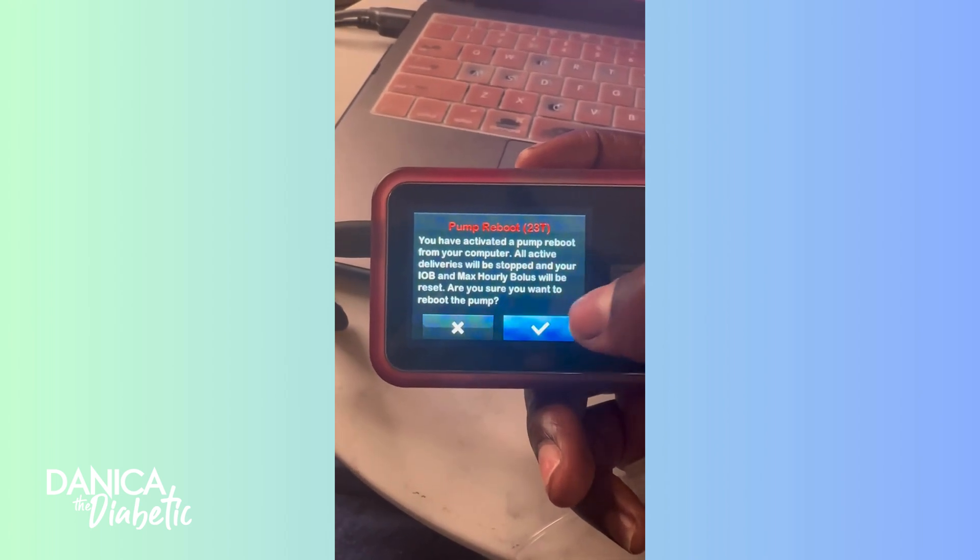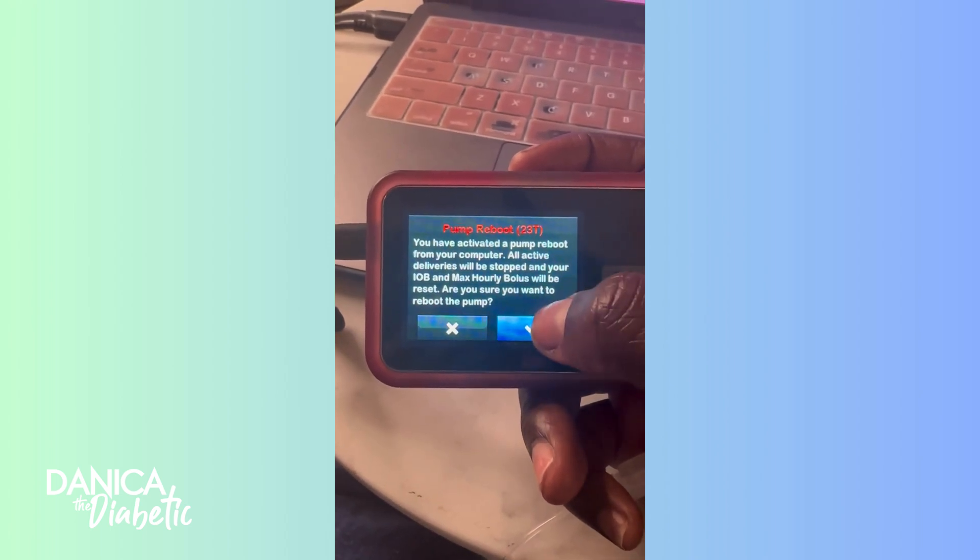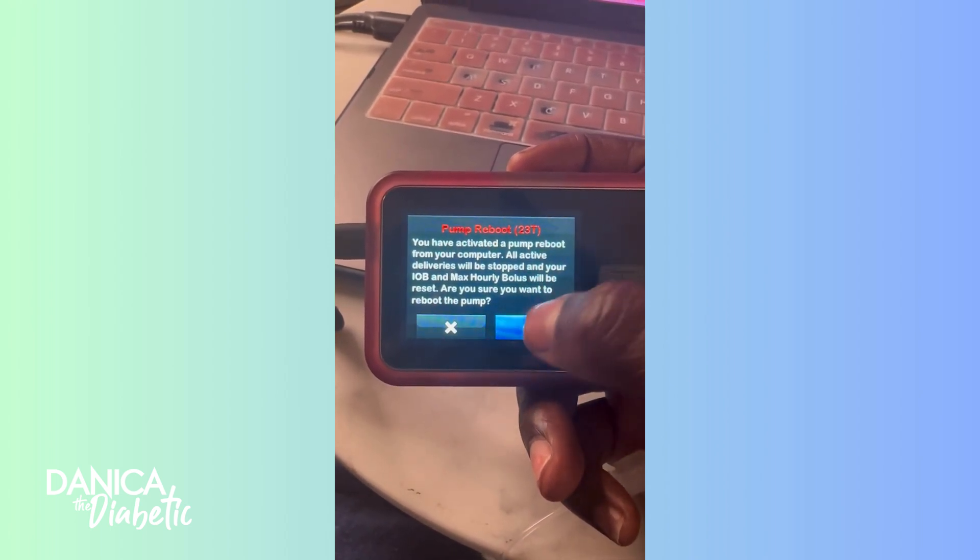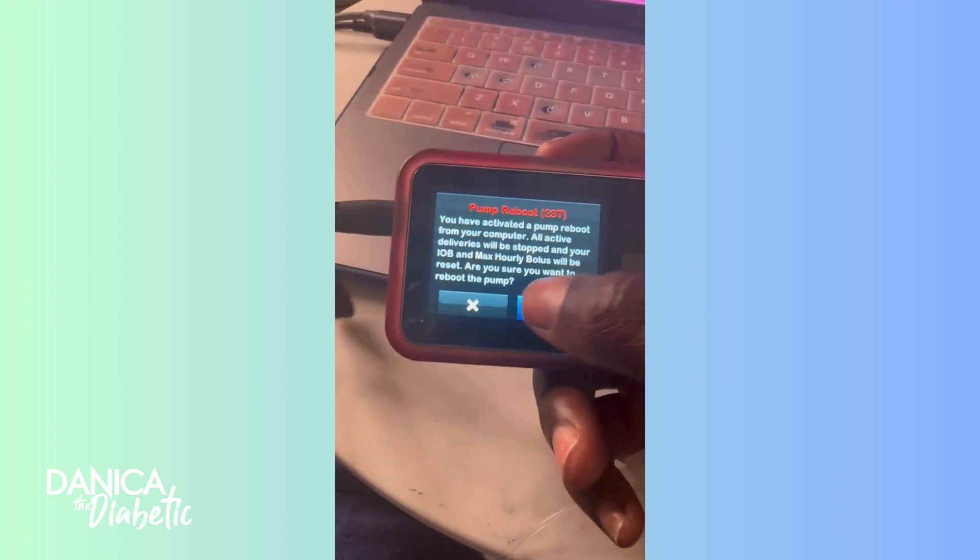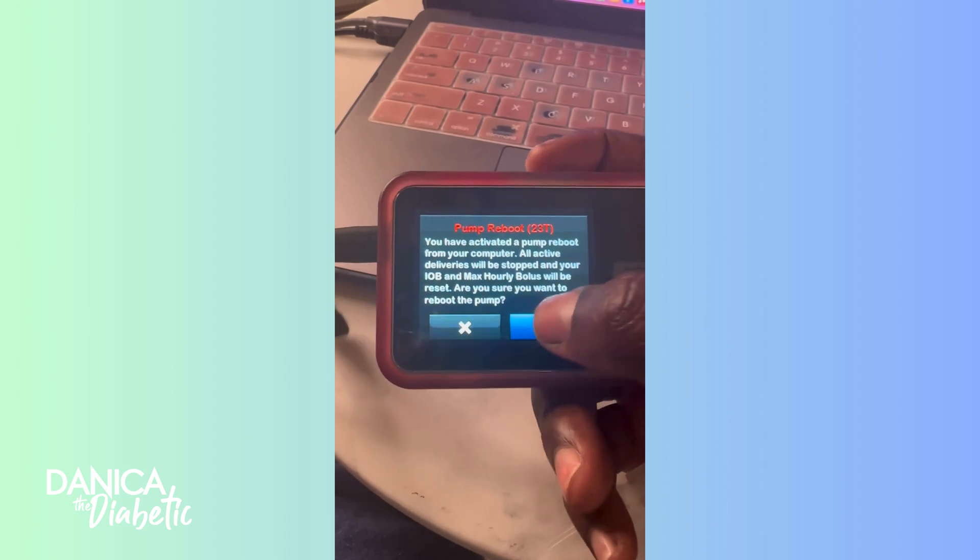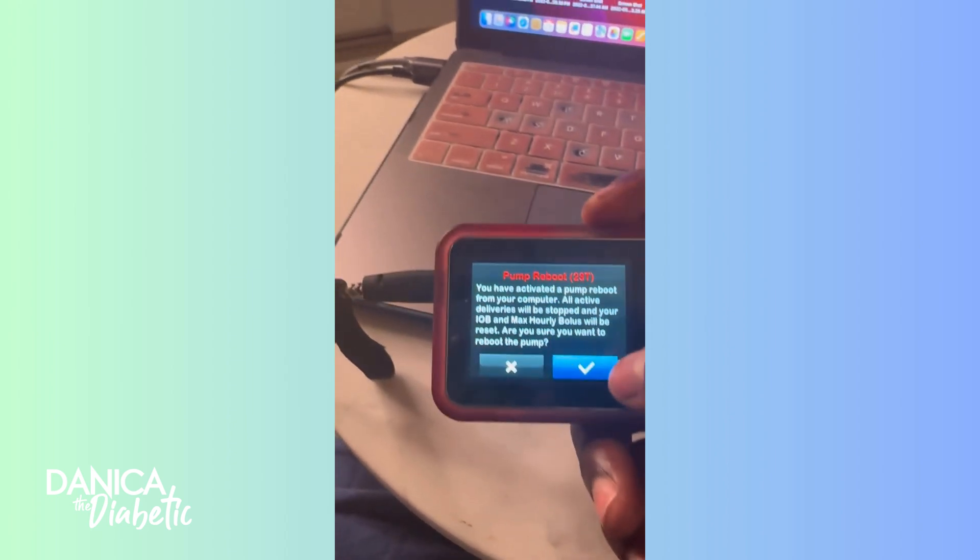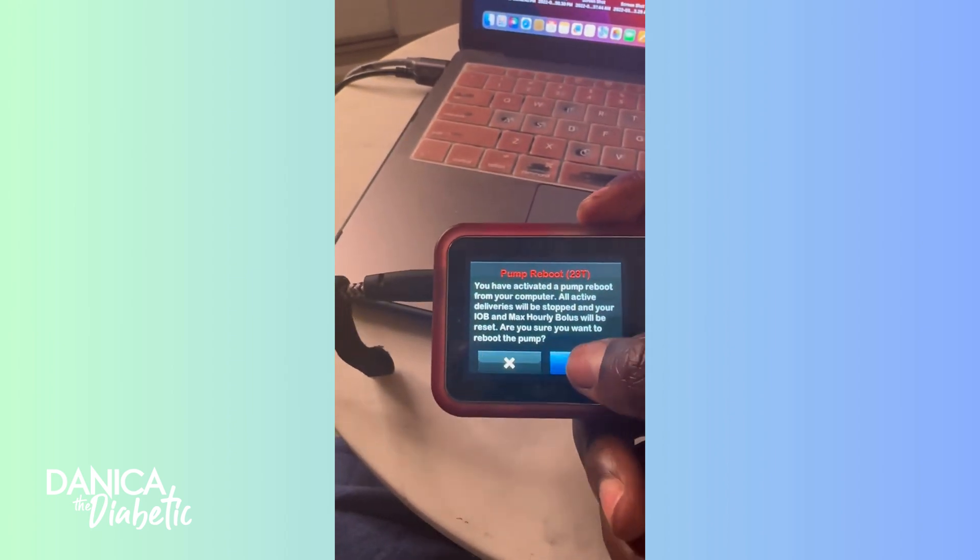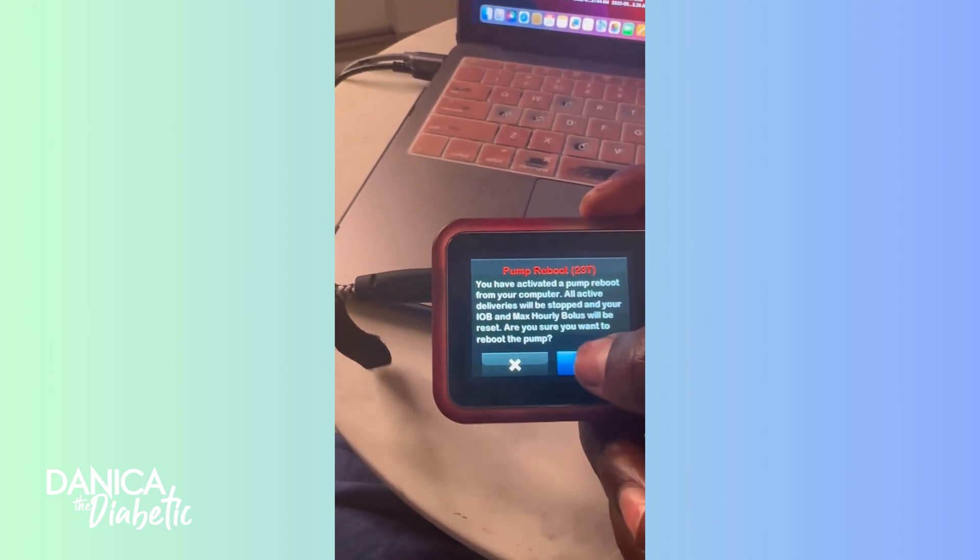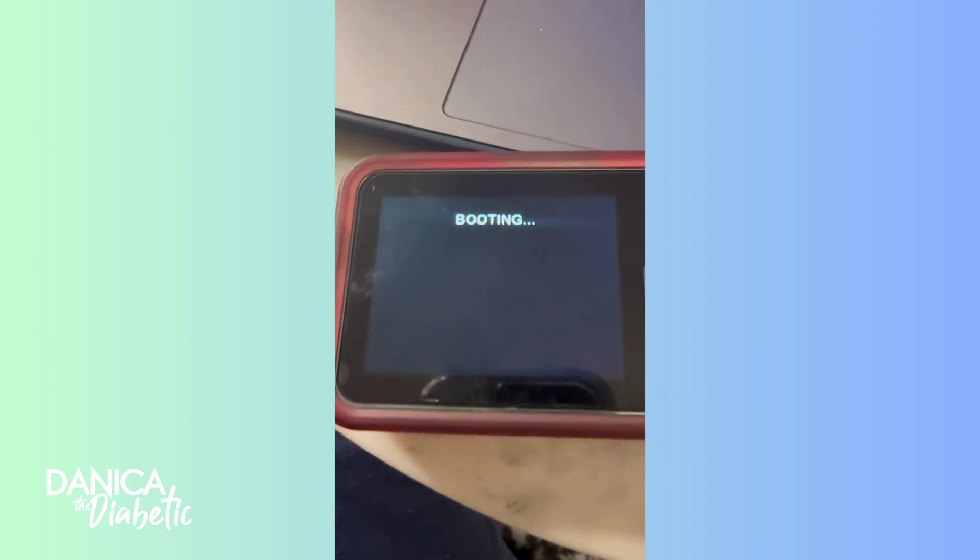You have to turn off your pump, which I had to remember how to do. You hold it down until the screen goes black. It takes a couple seconds, but you just hold it and eventually your pump is off just like this. It's going to stay off because it's doing the software upload. So don't freak out, it's just part of the process.